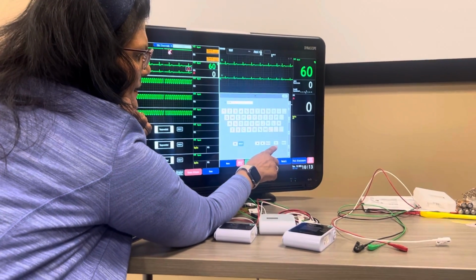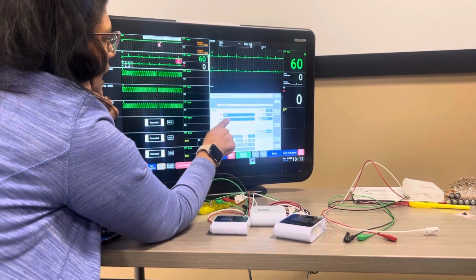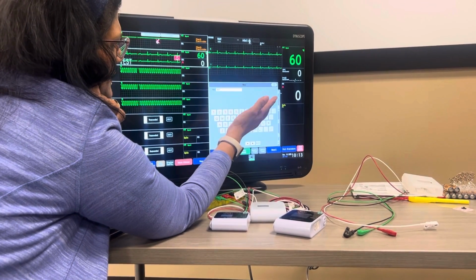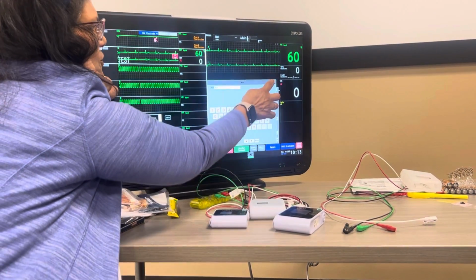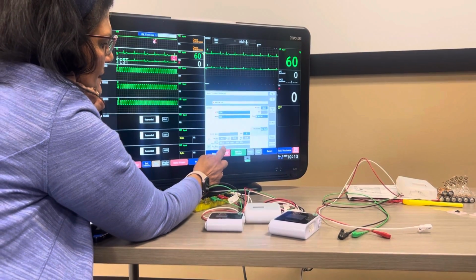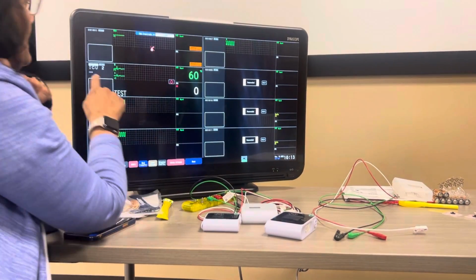There's a set button here. The set is our save button, so make sure that you click on that and then it'll save it for you. When you put the name in, you can put the first name, comma, last name, or however you guys wanted to do it, but there's no set button here, right? So you're just going to X out of there. Down here is the bed, so whatever the cage numbers are, and we'll just say they're in ICU 2, it will show up here.